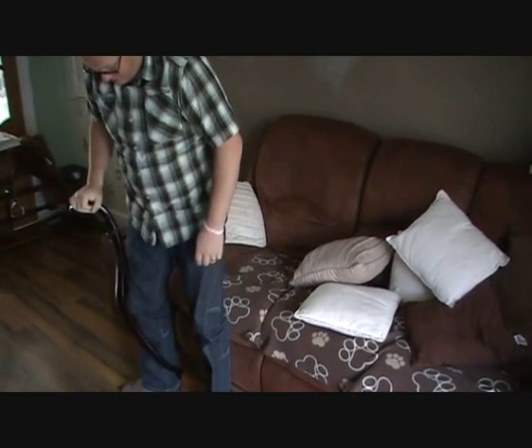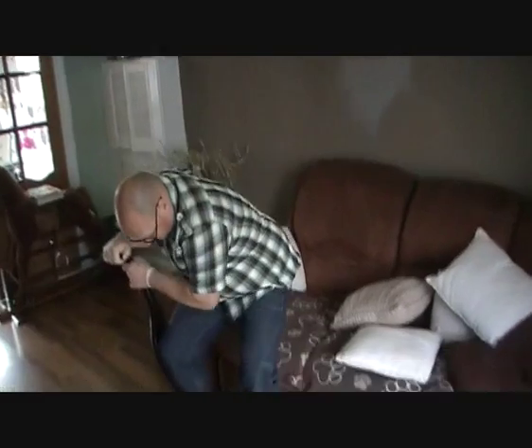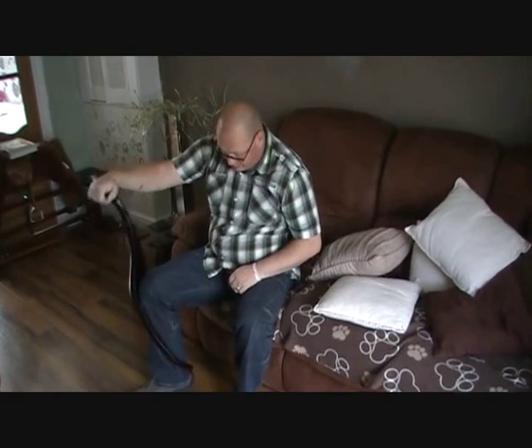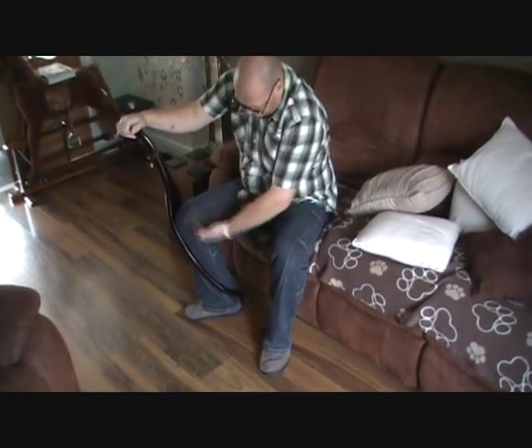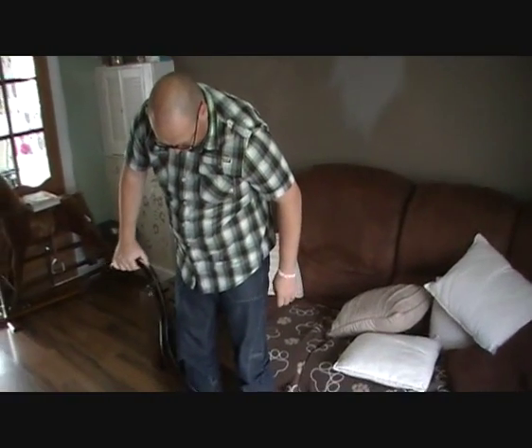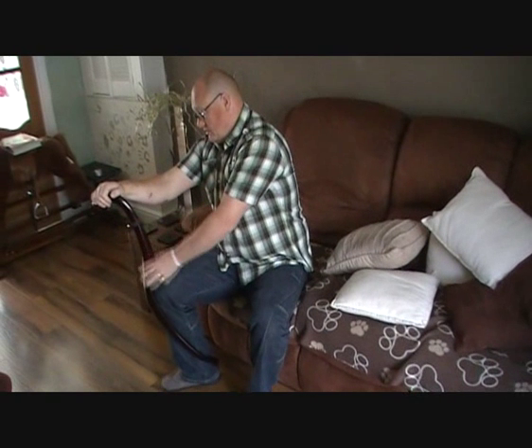You can do it with one hand, which is really good depending on the strength of your arms. Coming back down, I would say probably best with two anyway because you get more stability, but there's no slipping at all. I think it's the mechanics of your leg because it's already held there — it's holding you. It's really nice, really comfortable, and yeah, I like it, I like it a lot.